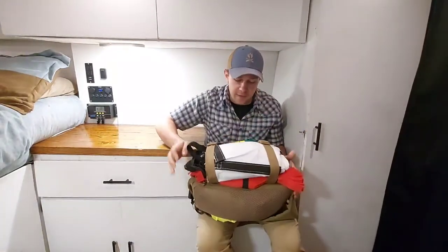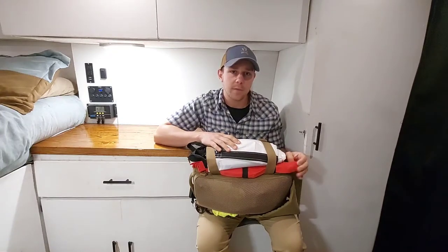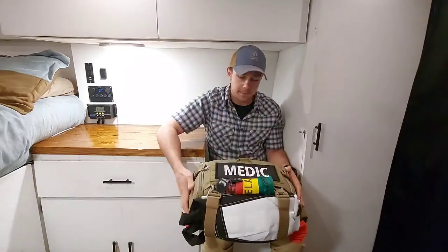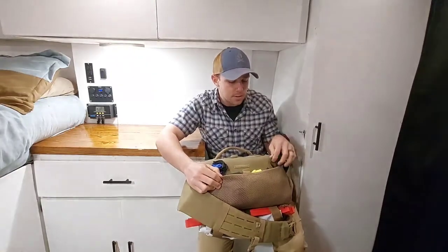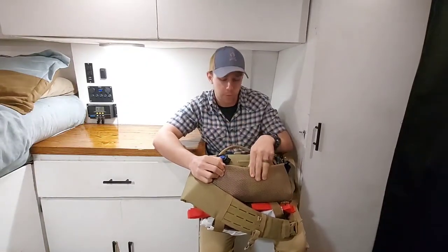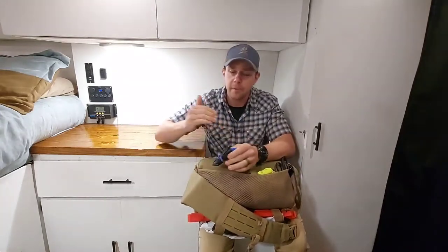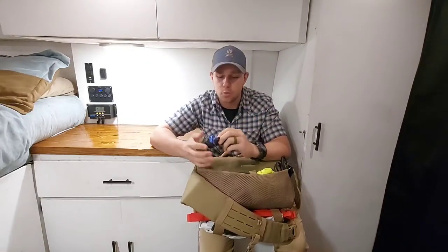Down at the bottom we have a quick litter — a 1200 pound capacity litter with 21 feet of nylon webbing to be used as any type of hasty harness. Right above that we have triage tapes that were just re-rolled so they're more compact. Moving to the back they have a mesh compartment which I keep some shears, permanent marker, and a fluorescent vest which is to distinguish me between any possible threat. And then over here we have a set of gloves. I always use black as a base layer and then throw blues or any other color on top of that.